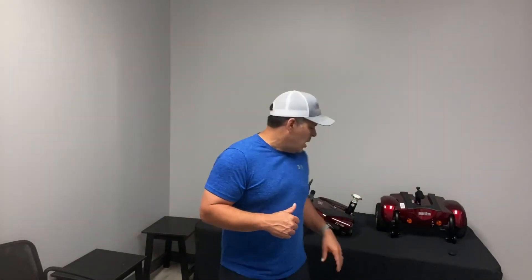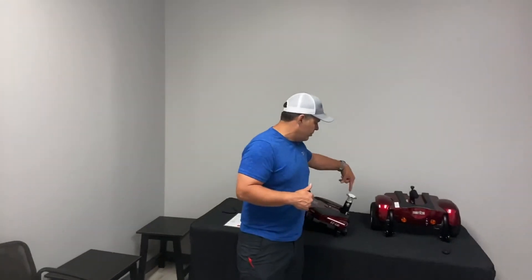After this segment we'll show me riding it around so you can see how well it turns. It does have a rear wheel so it turns a little differently, but it's almost a zero-turn type setting with a really tight turning radius. It works well inside homes, so keep that in mind.